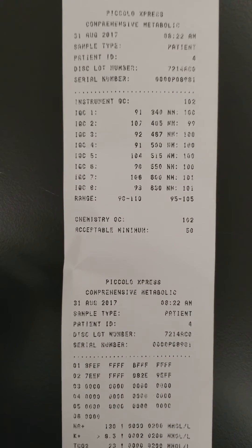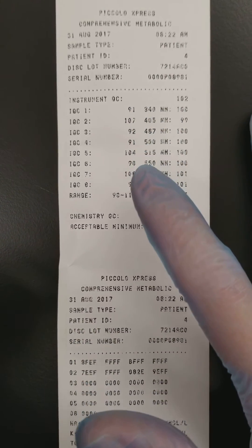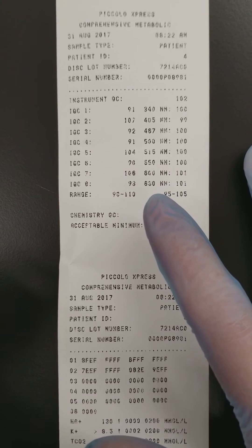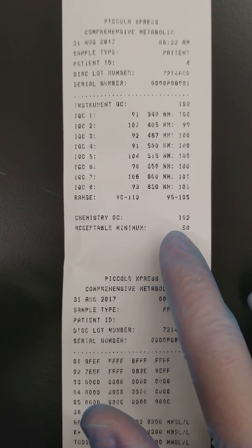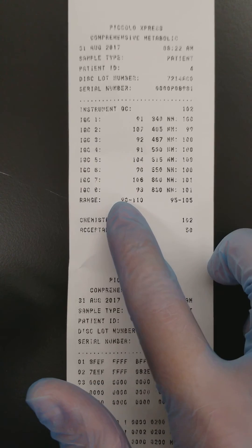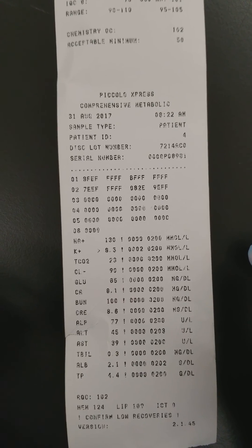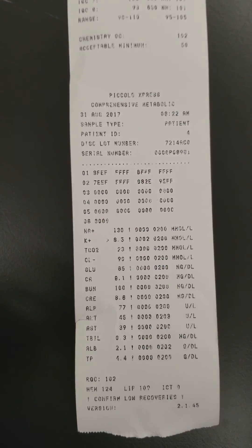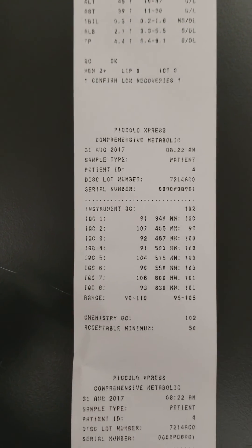Here's the QC part. It says our QC was good. It even tells you what wavelength the QC was measured at using the spectrophotometer inside the analyzer. The acceptable minimum is 50, and the chemistry QC that was run was 102, which is in the acceptable range. This is looking at more information — you don't necessarily need to know all of it — but it continues with confirming the ability of the analyzer to run correctly, which is what QC does.